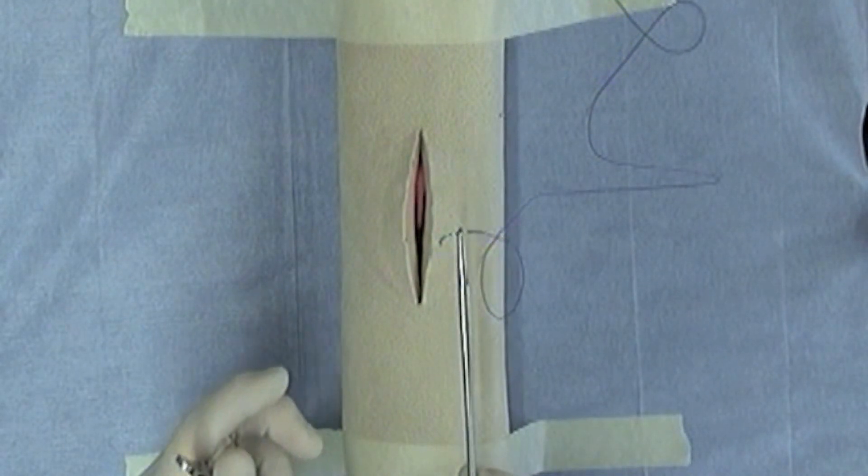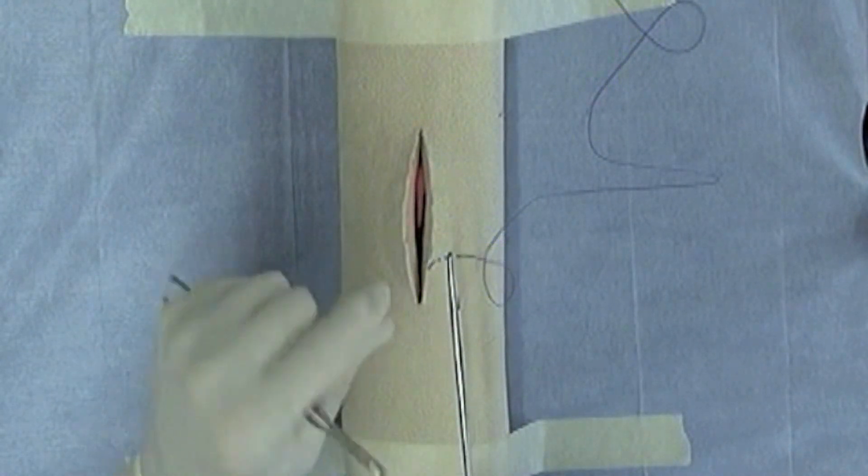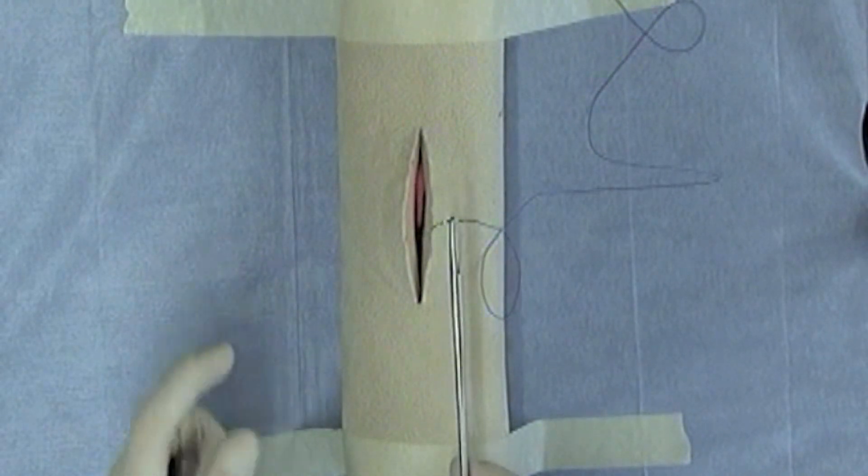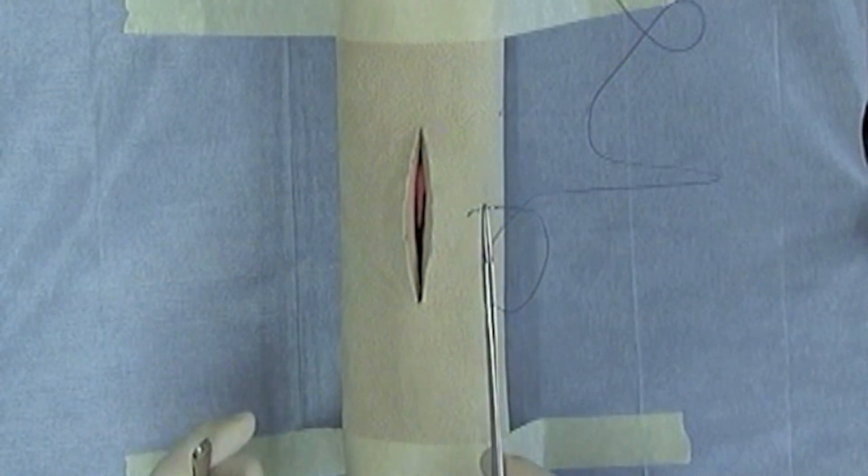You have to make a conscious effort to clamp because if you don't, then the needle will wobble and bend and obviously you'll lose your grasp with your needle holders.